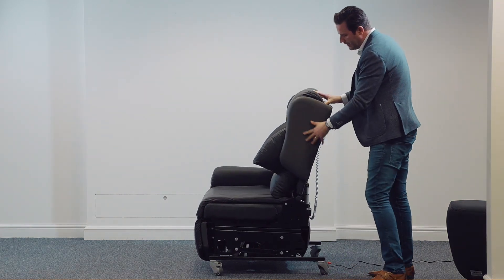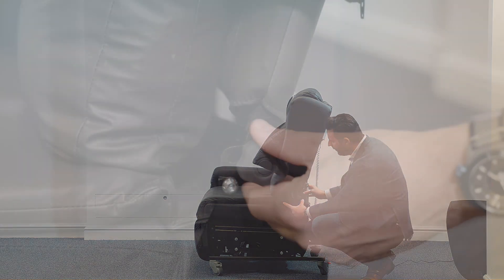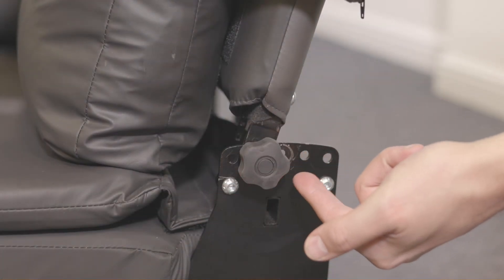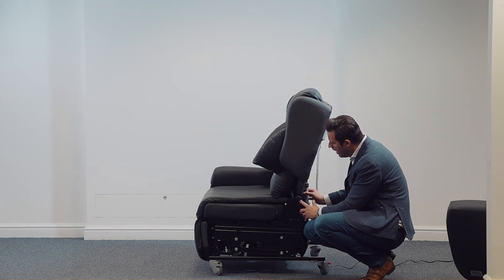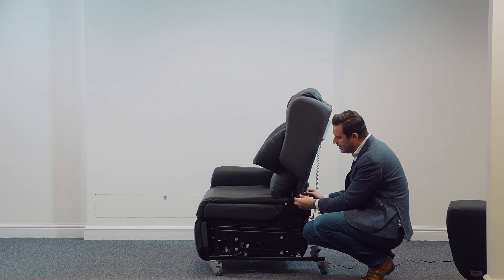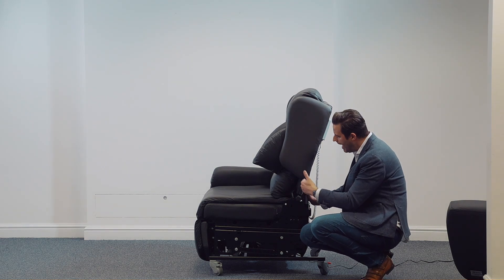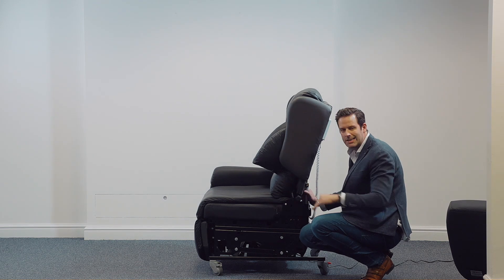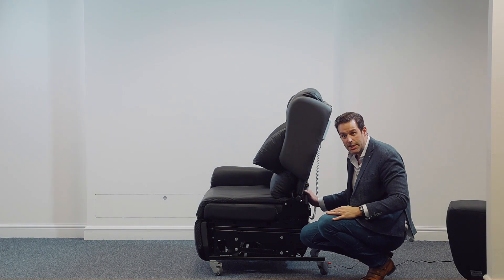If I just tilt the chair this way, we have the ability to adjust the depth of the base of the seat by a total of six inches. We have seven selectable holes for this particular nut and bolt assembly, and we have the same thing on the far side of the chair, enabling maximum adjustability in the seat depth — six inches in total.